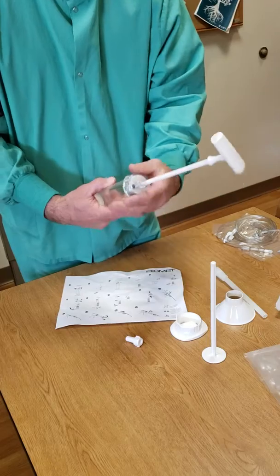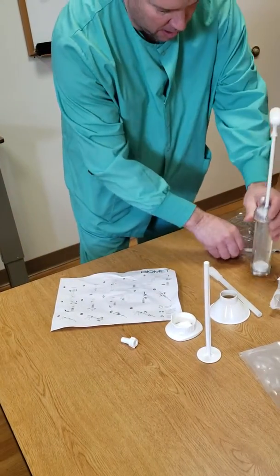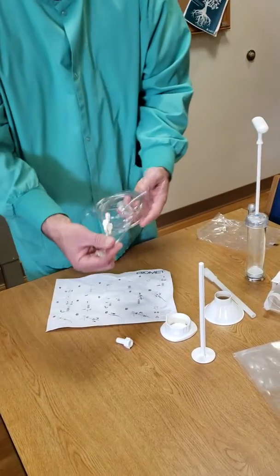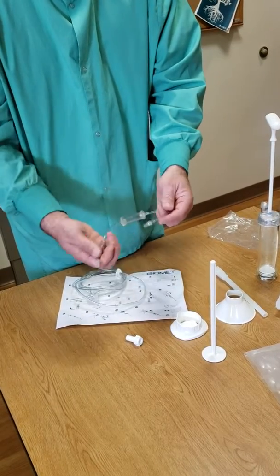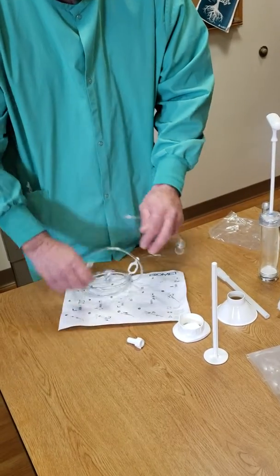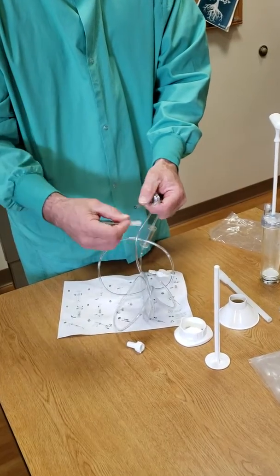Before you start to mix, I forgot, there's also this hose, just like normal mix systems that we use now. This little tip will go on the end by the filter, which will be handed off.